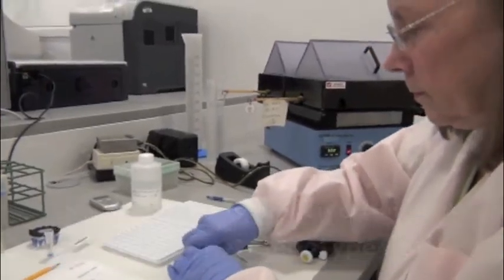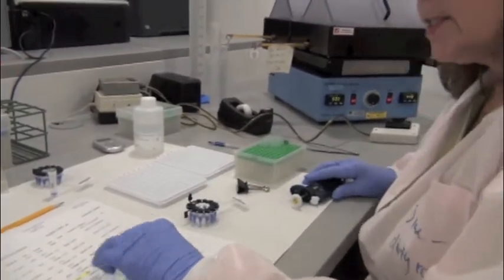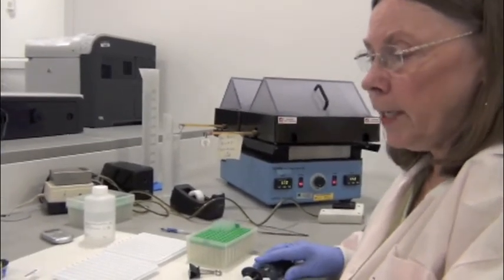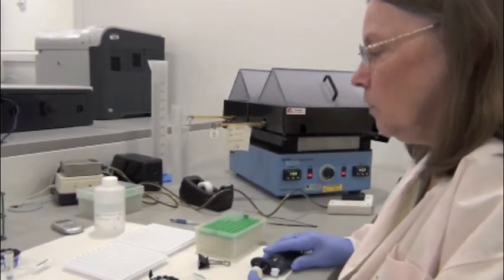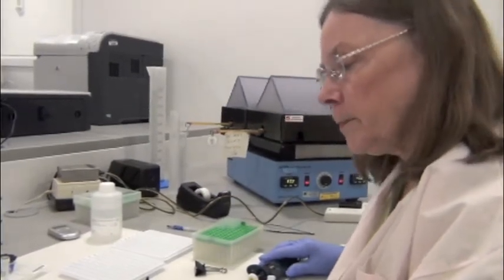So here you have the list of all of the positive patients. This is the results from the COBAS, which is the thermocycler, which does the amplification. It gives us our end product, the amplicon here, that we need to put into this kind of system here with the troughs and the strips, but it works.